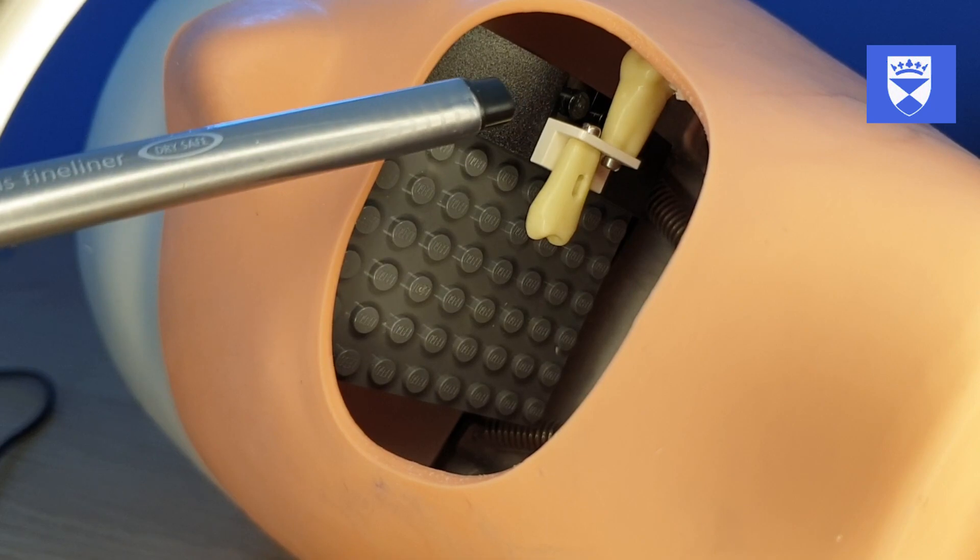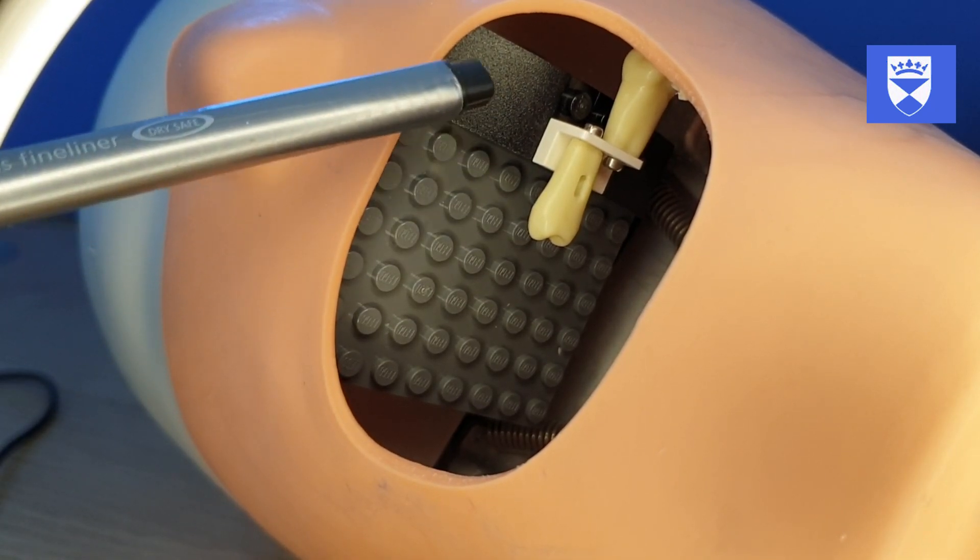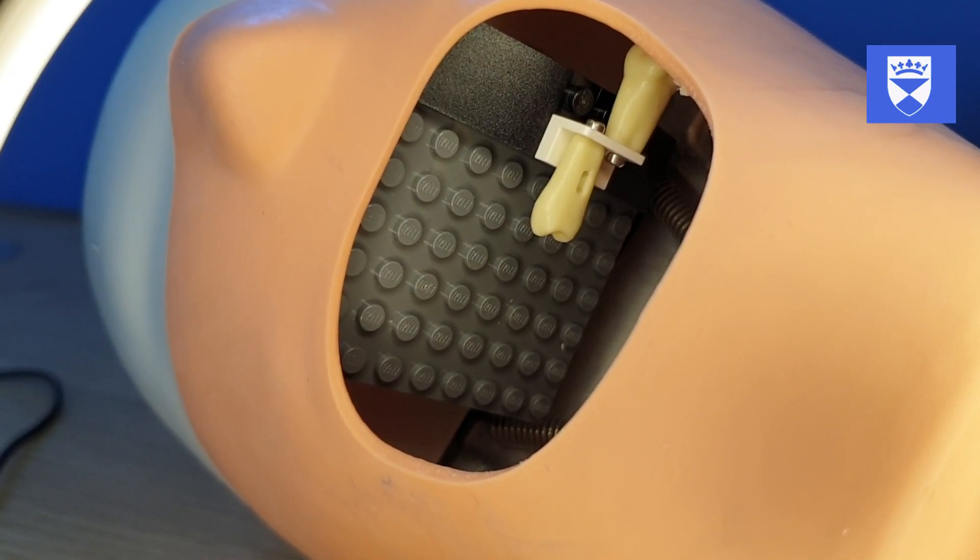There are a number of different bricks that we can get which means that we can place the teeth in different areas and put different challenges in.